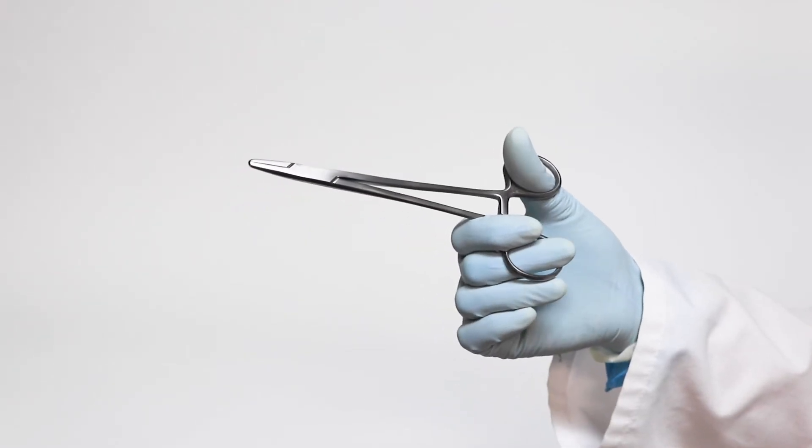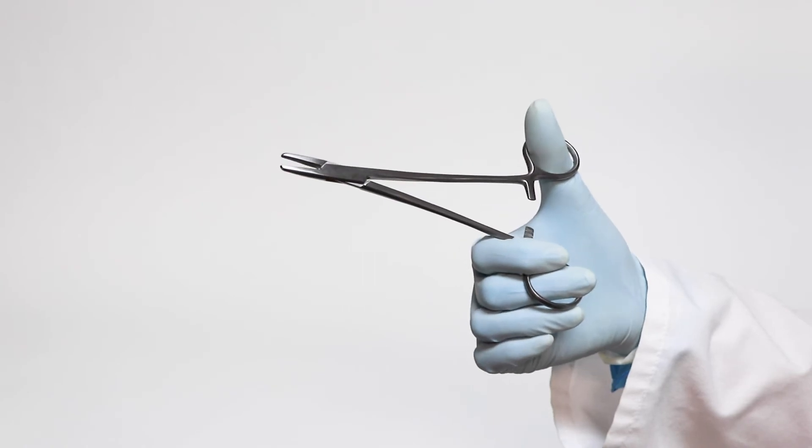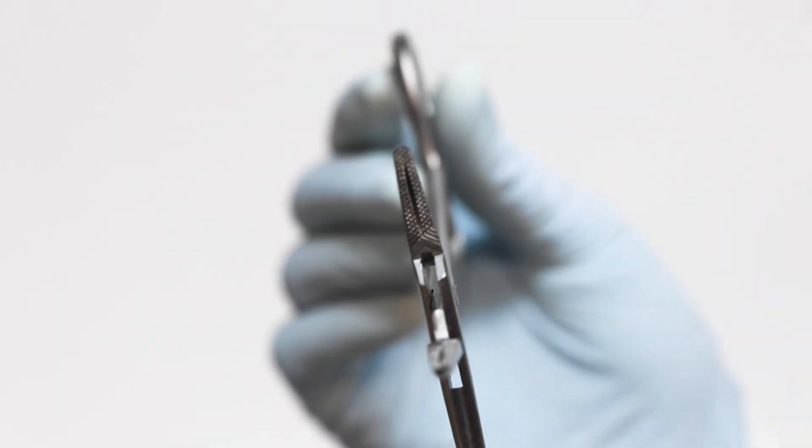The DERF needle holders are used in ophthalmology, dental, and plastic surgery operations. Their short jaws with delicate serrations are perfect for use with 5-0 and 6-0 sutures.